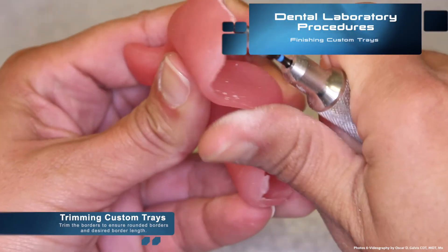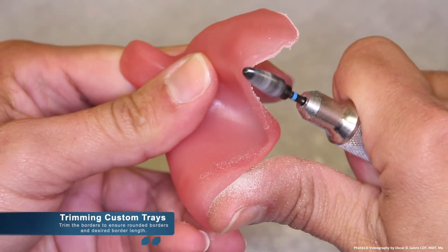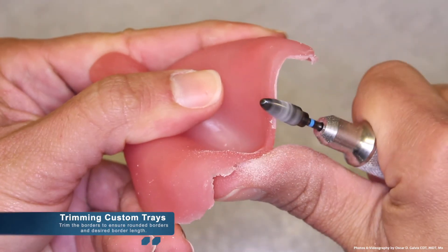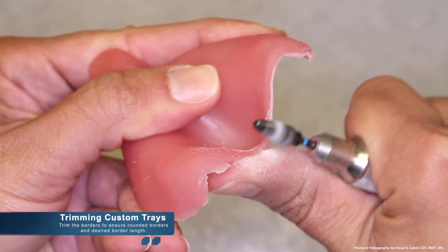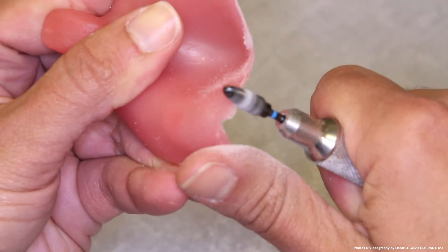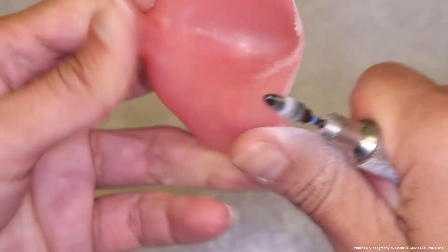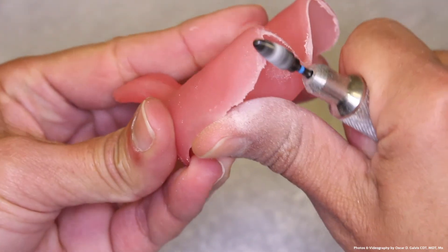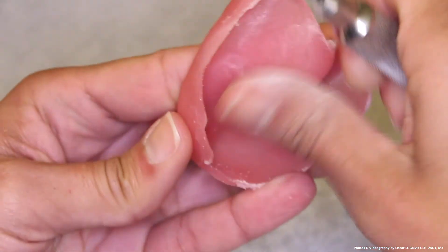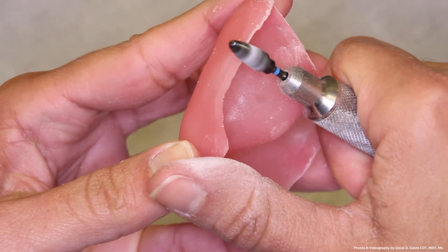Borders of a custom tray should be about three millimeters short of the depth of the sulcus areas. It should be noted that although the Air Force manual states specific measurements and techniques in fabricating a custom tray, much of this ends up being a matter of perspective and preferences with your clinicians. Some clinicians prefer handles with smaller inclinations, no spacer, or even shorter or longer borders.